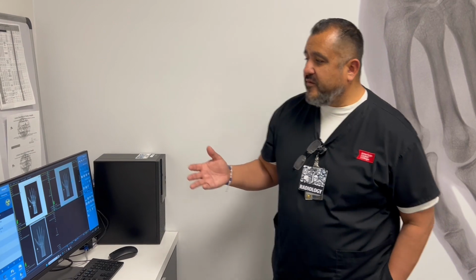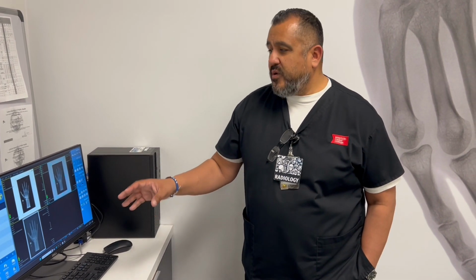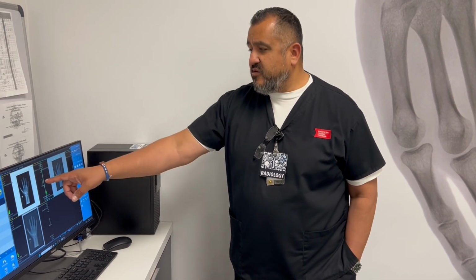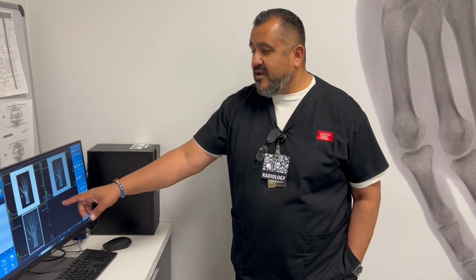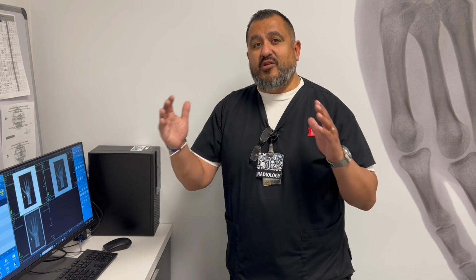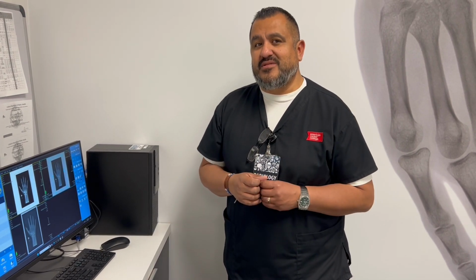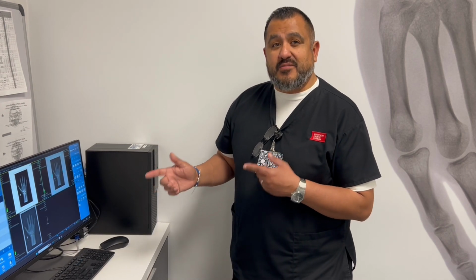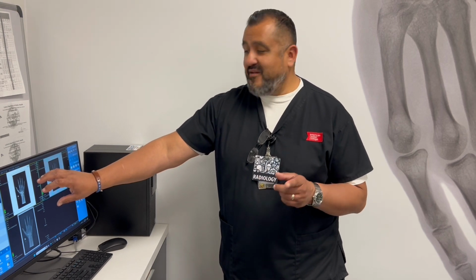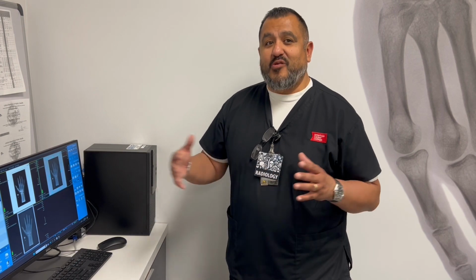So again, I just wanted to show everybody the difference between kVp selection and how it affects the gray scale. We went from 60 kV to 70 kV to 80 kV. So you can see as you increase the kVp, you're going to get more gray tones. So again, you're making the scale longer, and when you make the scale longer, it's going to be less difference, and that's going to be known as lower or decreased contrast, okay? So I'm hoping by seeing this, it actually helps you understand the difference between high contrast, short scale, more black and white, versus low contrast, longer scale, more gray tones, all right, and lower contrast, okay?